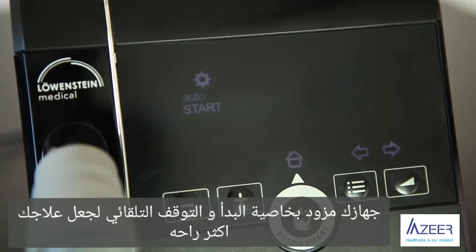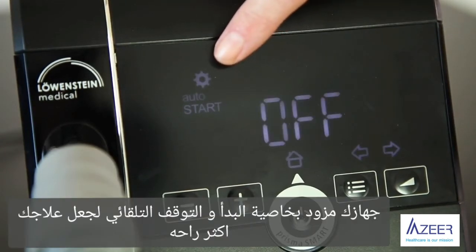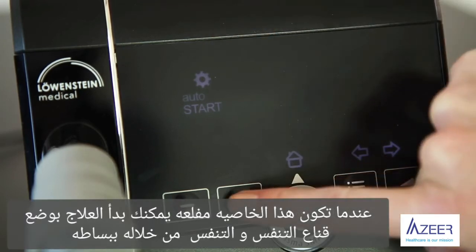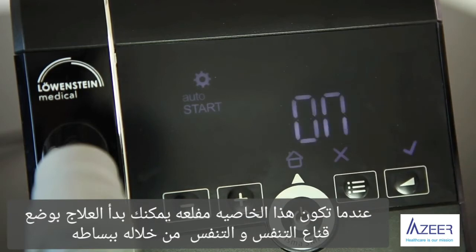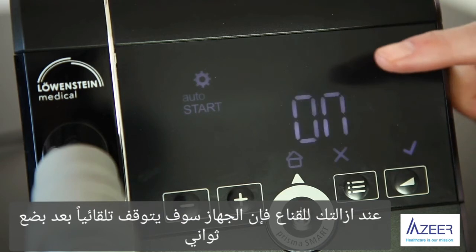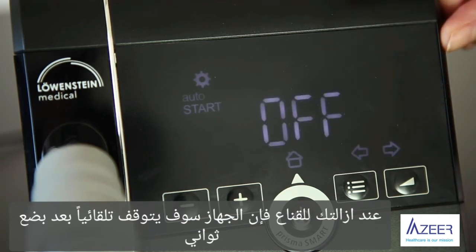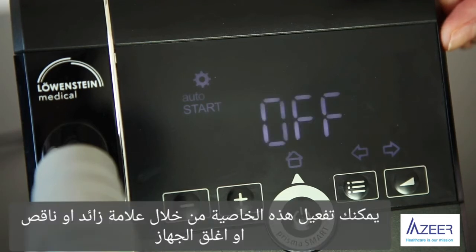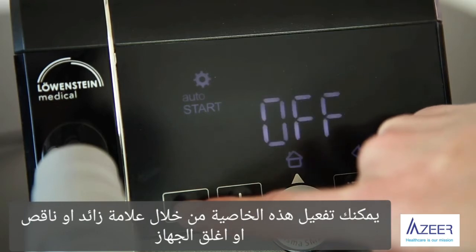Your therapy device is equipped with the auto start-stop function to make its operation even more convenient. When it is activated, you can switch on the device simply by breathing into the mask. After your therapy, when you remove the mask from your face, the device switches off automatically after a few seconds. You can activate this function with plus or minus, or switch it off.